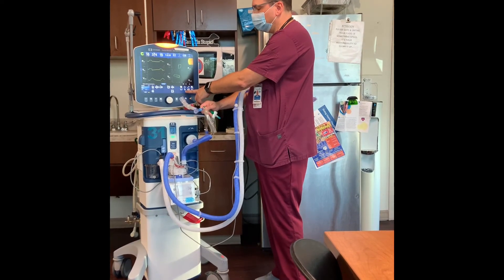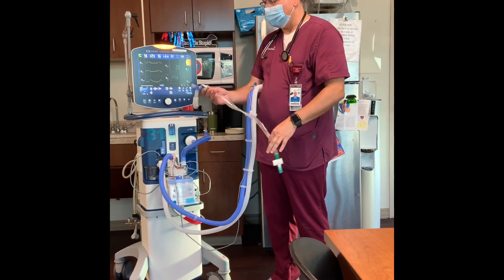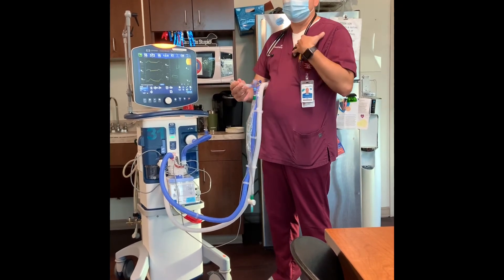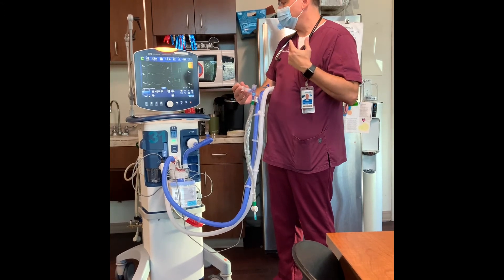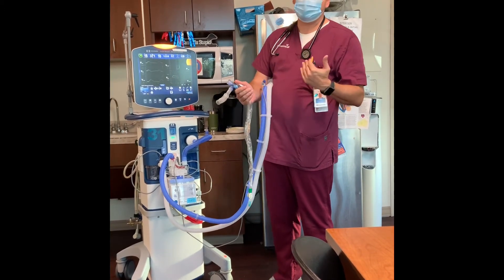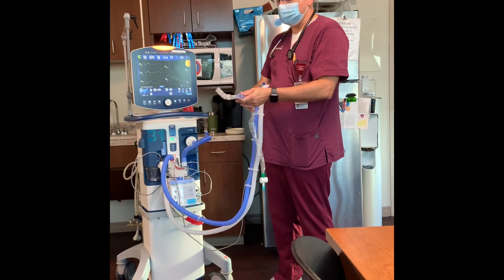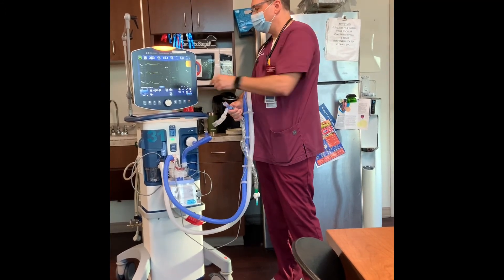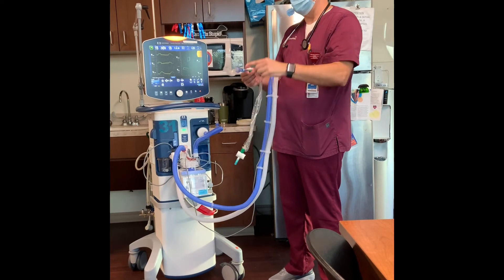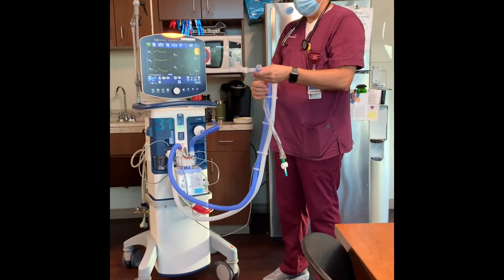The other button to hit is the 100% O2 button. That helps pre-oxygenate the patient before suctioning and may ward off complications such as vagal stimulation and a vagal response — the patient may be very sensitive with their oxygen needs, and suctioning could lower their sats quite a bit or cause arrhythmias. Pre-oxygenating with 100% O2 first can alleviate some of those problems. So if I see high peak pressure and the patient is coughing, I would hit alarm silence and 100% O2 and then get ready to suction.